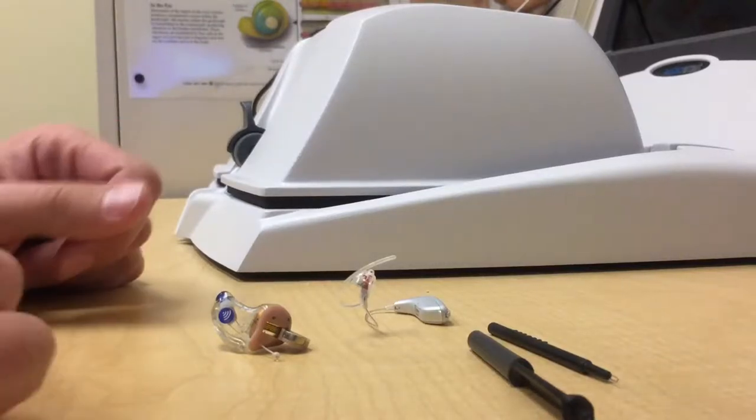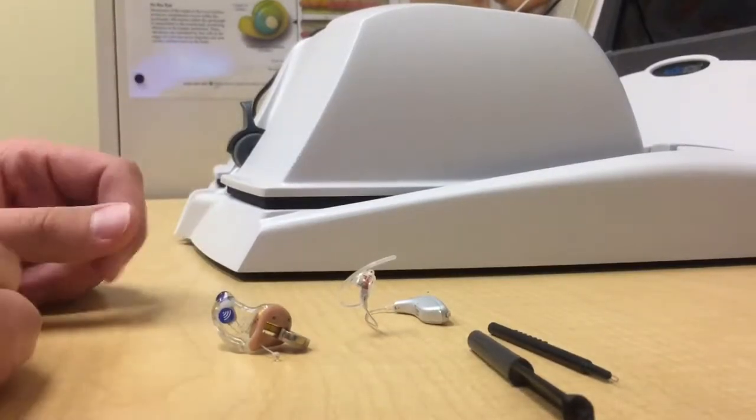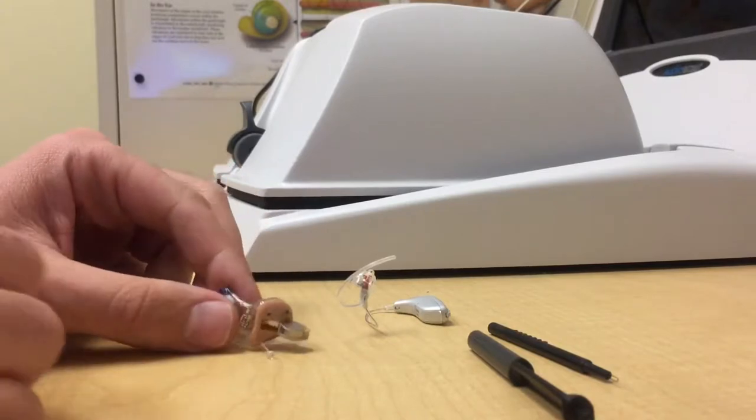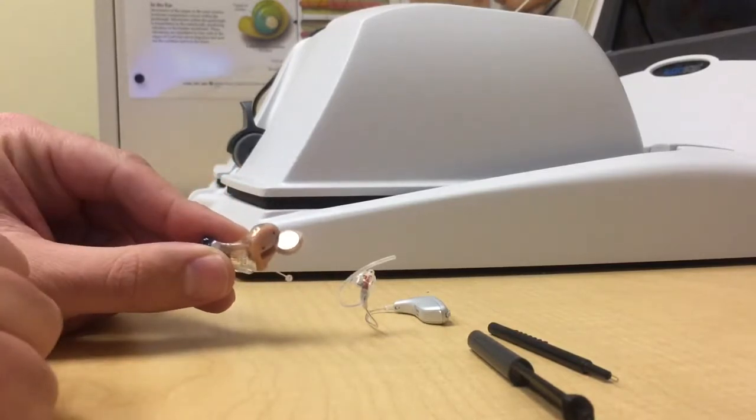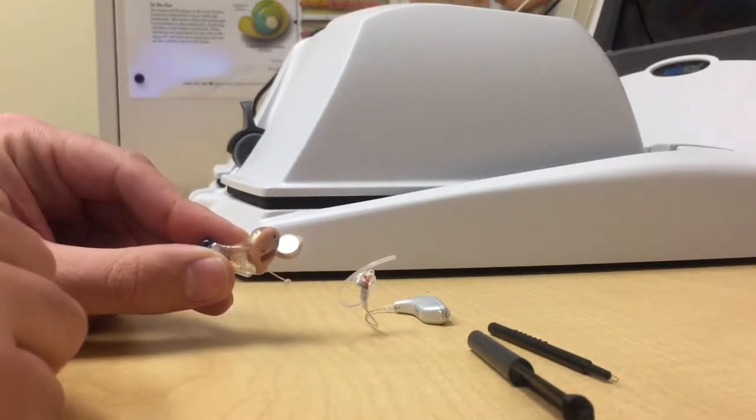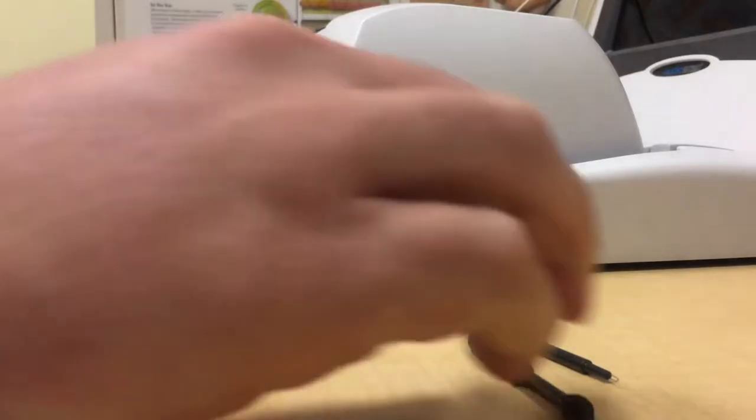If you have hand tremors or poor dexterity in your fingertips, it's often really difficult to take the battery out of a hearing aid. To make it a little bit easier for you, there are little tools that you can use.